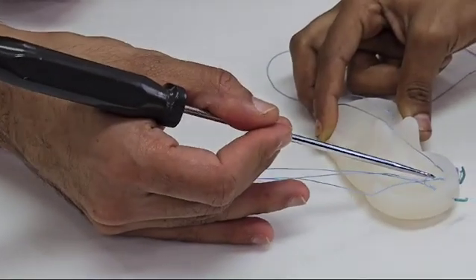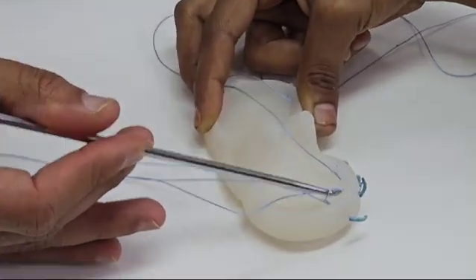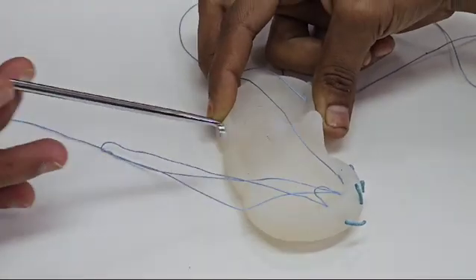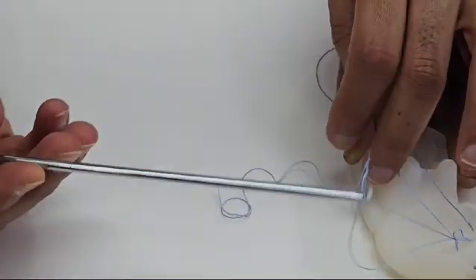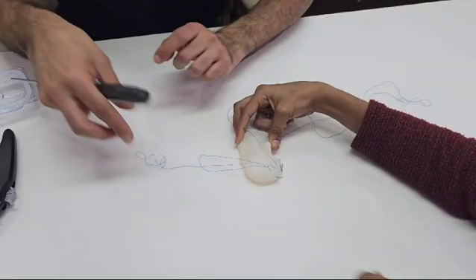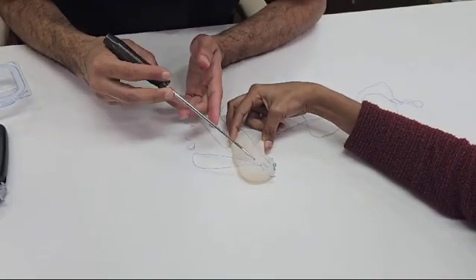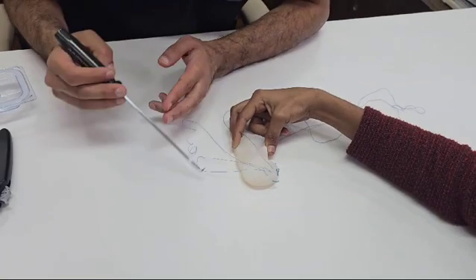This is the first loop here which you can appreciate, and this is the second loop which you can appreciate, and then there is a wire like this. So now there are three loops - the smaller loop, the bigger loop, and the pulling wire.